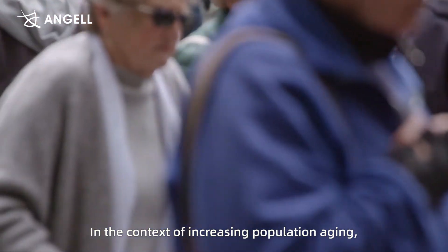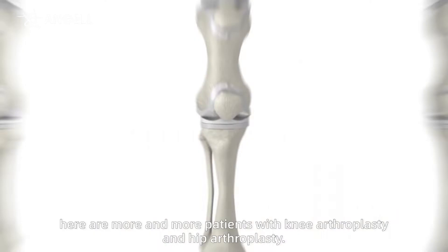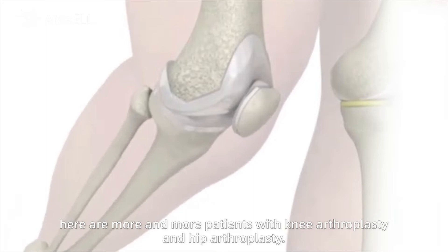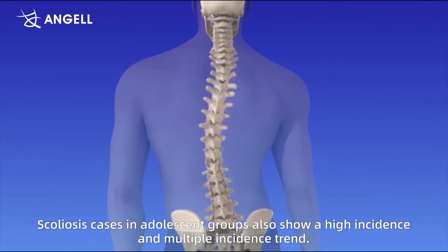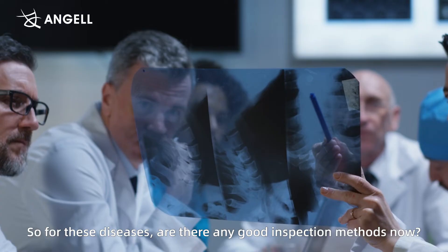In the context of increasing population aging, there are more and more patients with knee arthroplasty and hip arthroplasty. Scoliosis cases in adolescent groups also show a high incidence and multiple incidence trend. So for these diseases, are there any good inspection methods now?